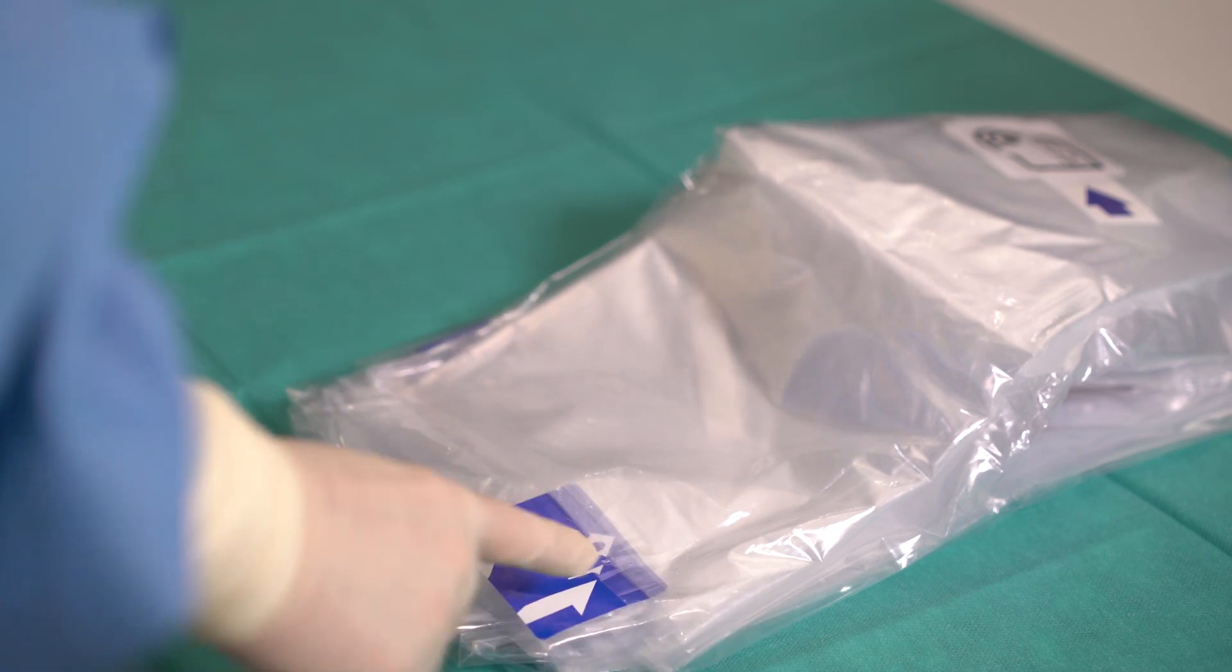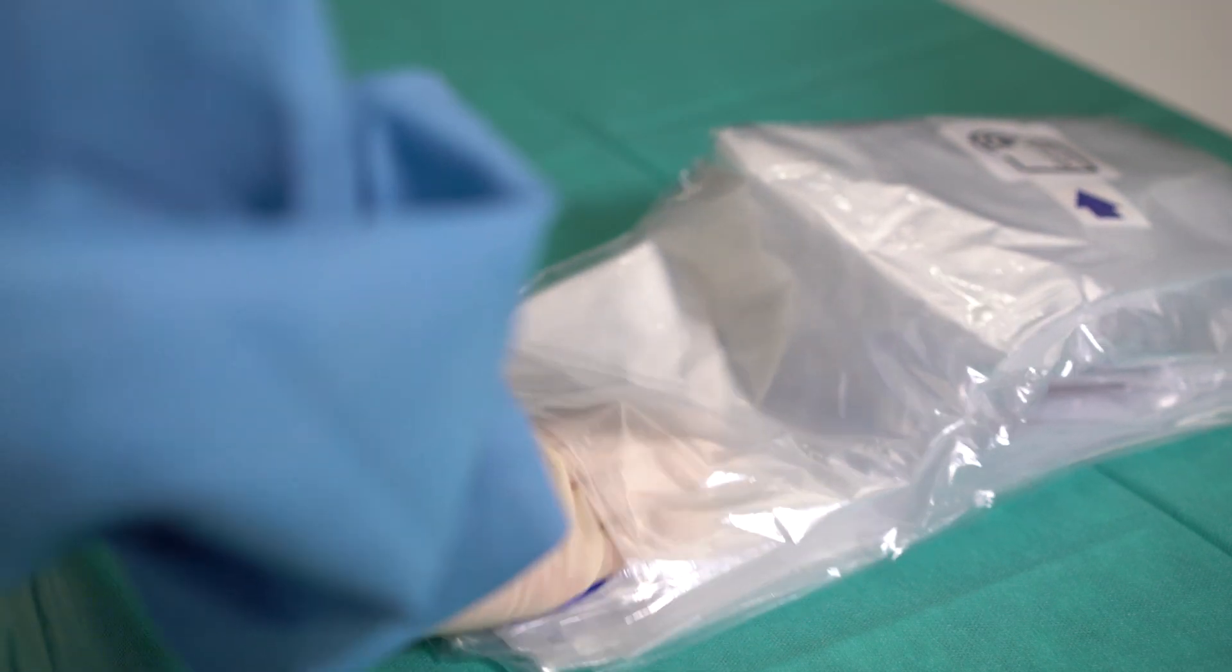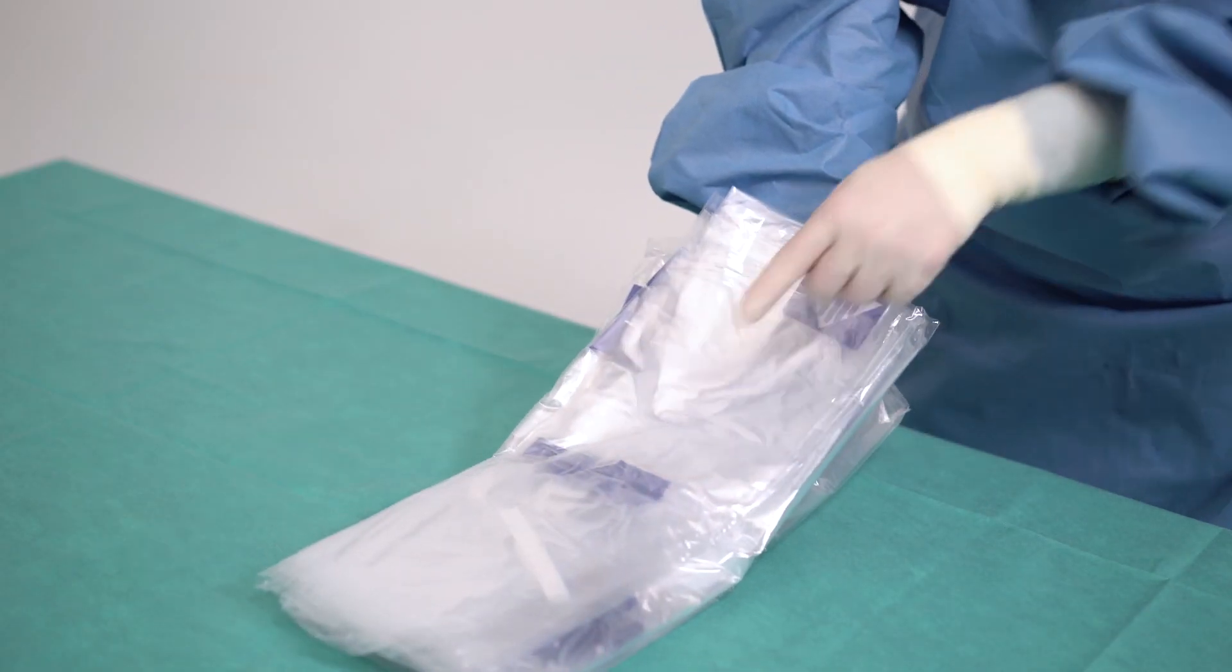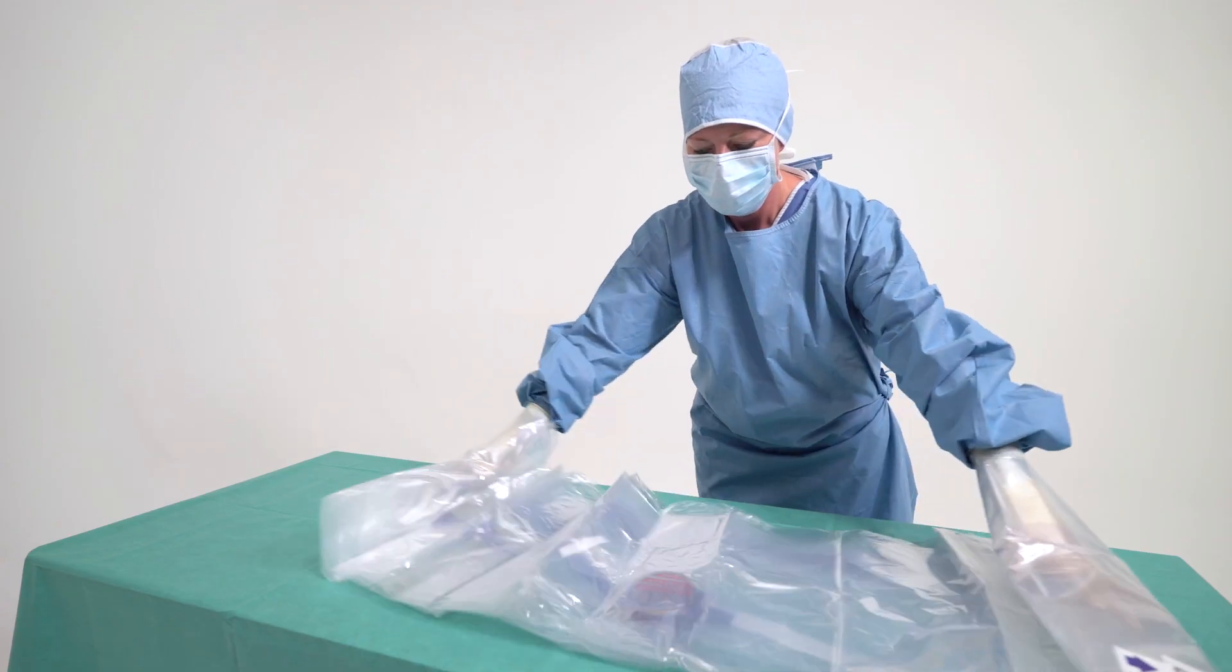Unfold the drape and look for the hand symbols. First, insert your right hand. Flip the drape and insert your left hand. As you slide in your left hand, the drape opens up.